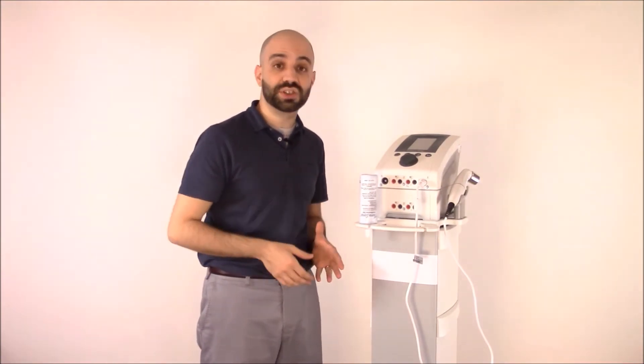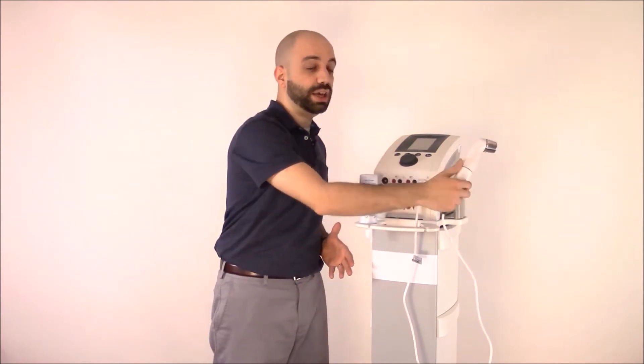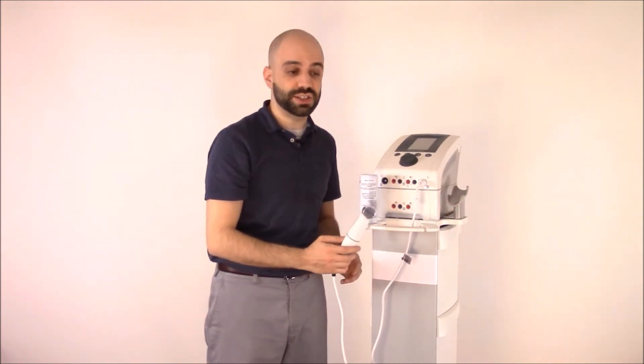The Intensity therapy cart also comes with a utility handle, unique in design. It's perfect for storing your ultrasound gel, lead wires, and ultrasound therapy wand for easy access.